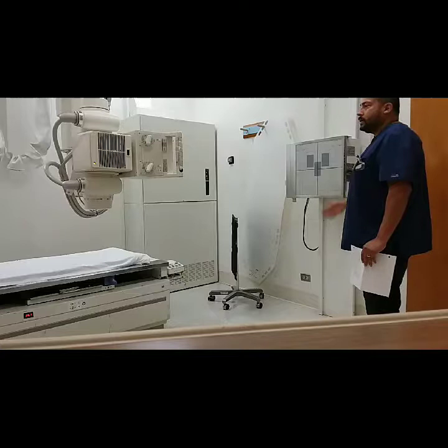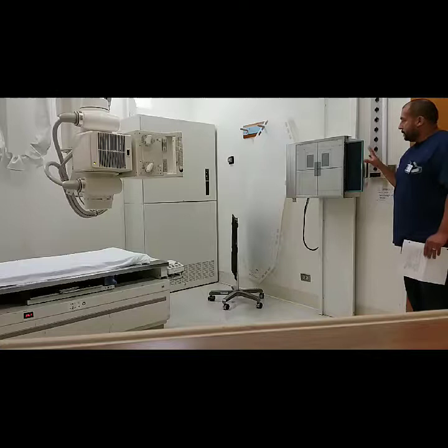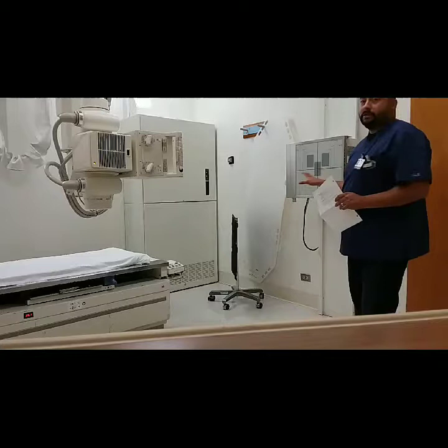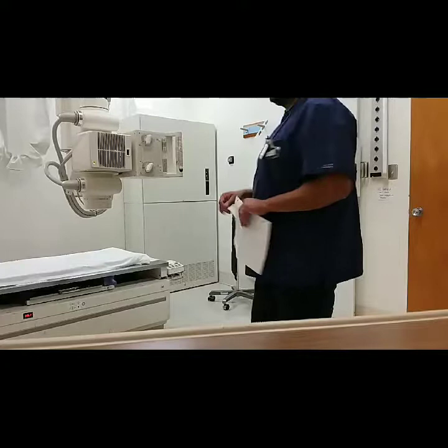We'll add a 14x17 cassette — crosswise, or landscape orientation, for a male patient, and portrait for a female. Once we get an understanding of who our patient is, we will adjust accordingly. Now that our room is set up and detented, we are set for the wall Bucky.